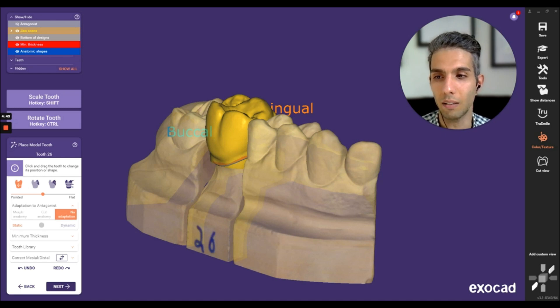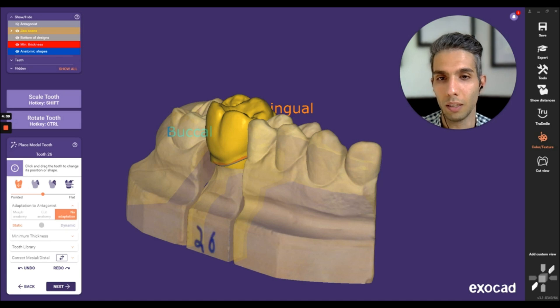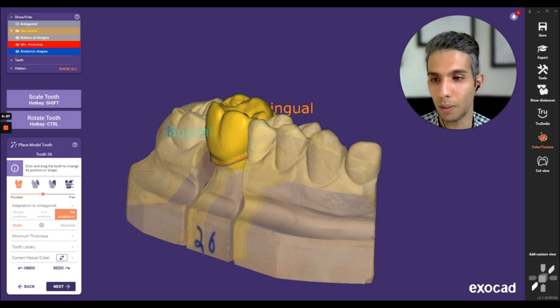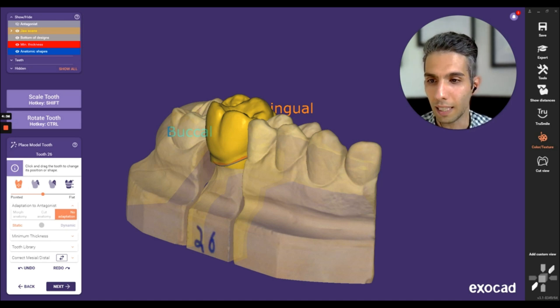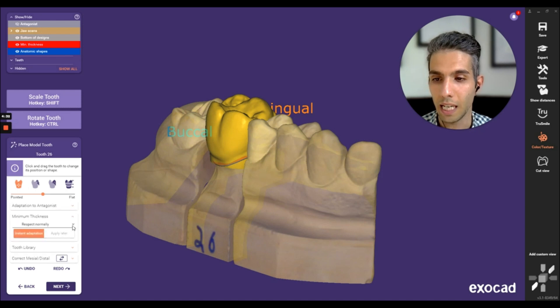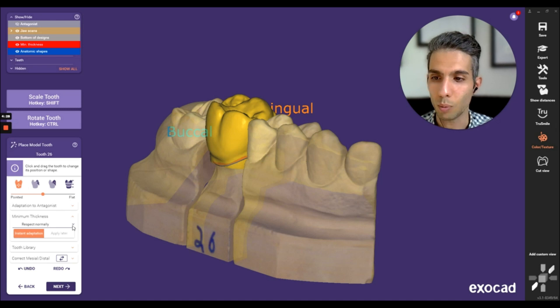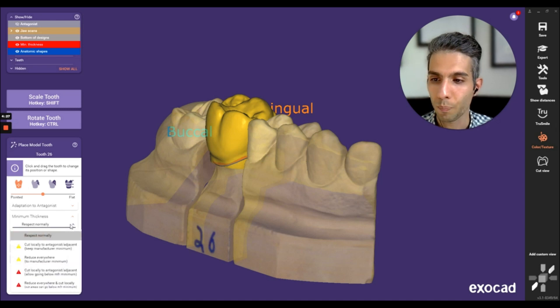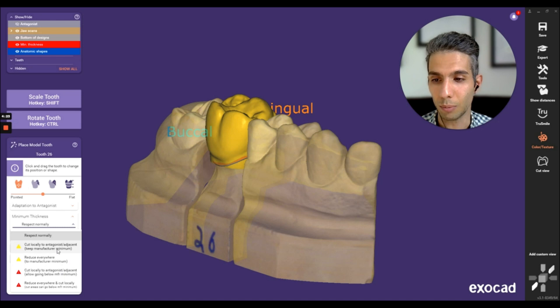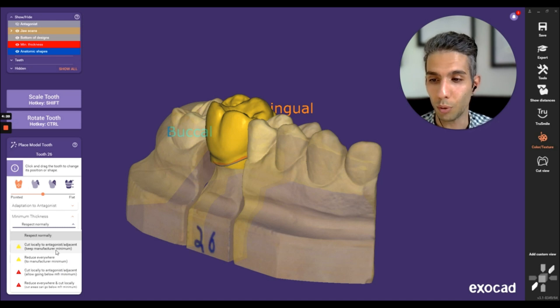In this new feature, Exocad allows us to play a little bit with the minimum thickness in the tooth placement step. I'm assuming that the tooth placement is done, and by clicking on the minimum thickness — it is always set by default on 'respect' normally — I also have four other options that are sometimes really useful if you know how to use them.